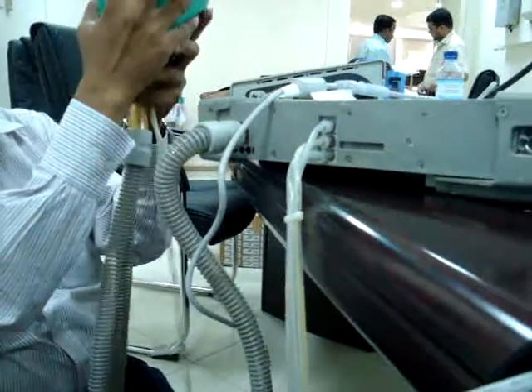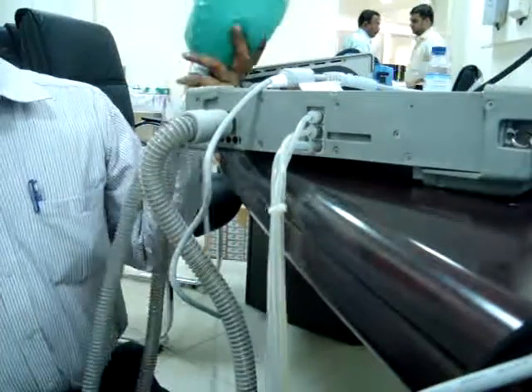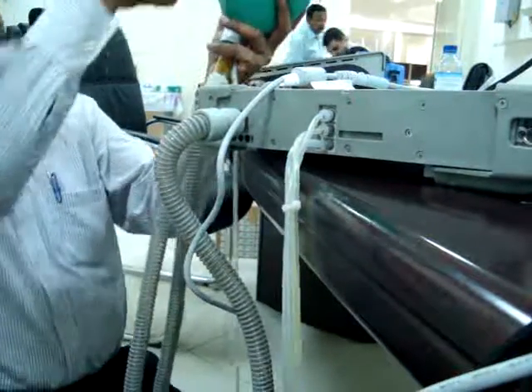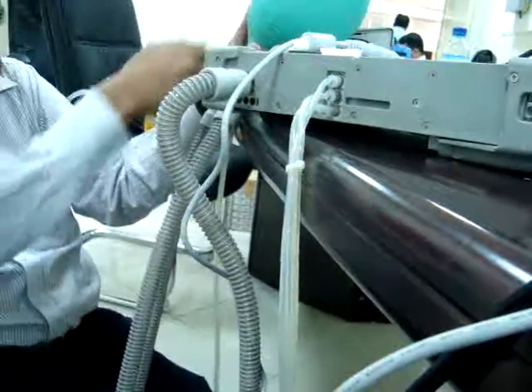This is like a human being's lung. So the air is going inside the lung with pressure because he cannot breathe. He is paralyzed. His muscles are all dead, in a resting stage. So it goes inside, then the return air comes out by pressure, like a balloon.